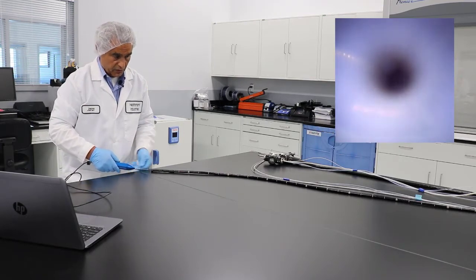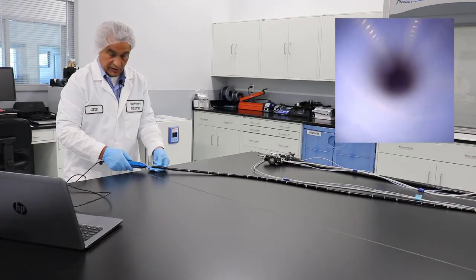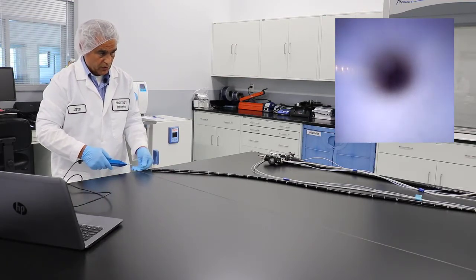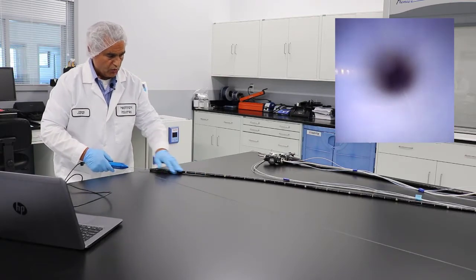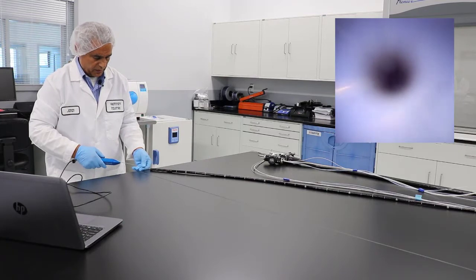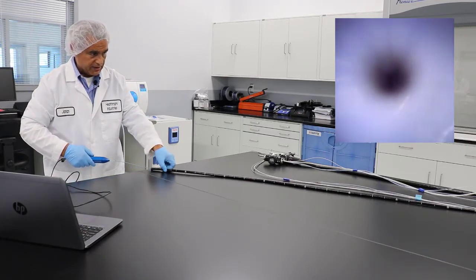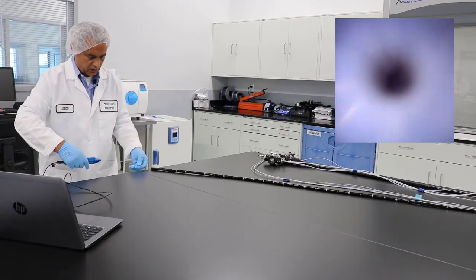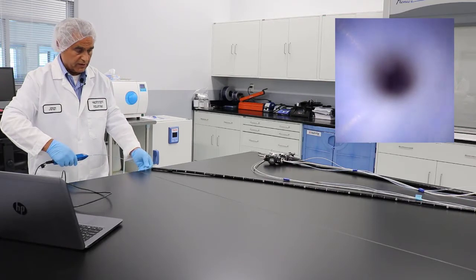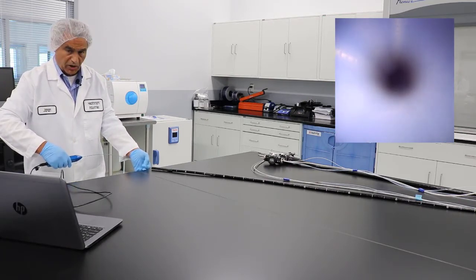Go in until you finish. You may pass this point already, but again move it really slowly and pay attention to your scope — if it's straight, you will see everything a lot better than if you bend it. Coiling is not really the best thing for doing the inspection. Again, really slowly remove the scope, and make sure that you look at your monitor to see if you have any debris.